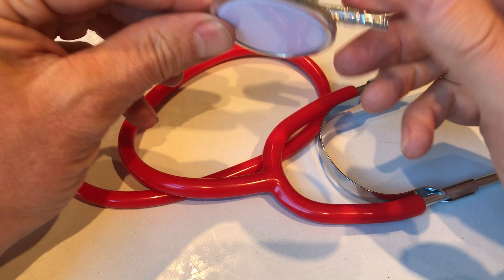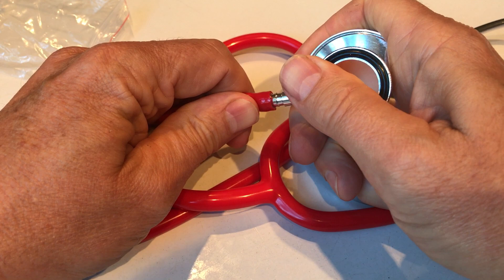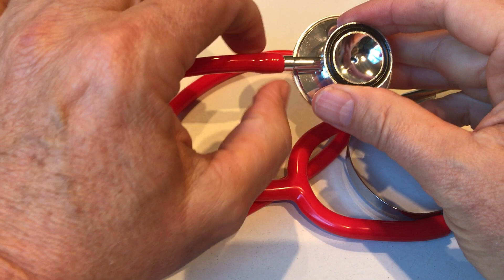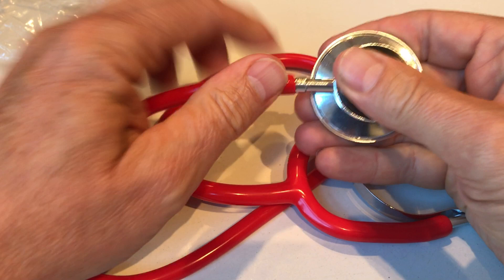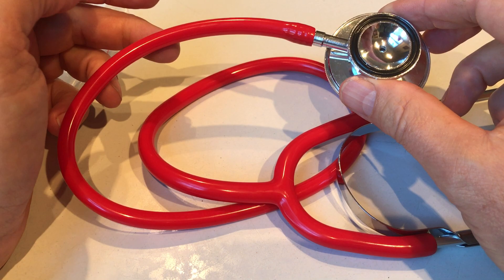To use the diaphragm you rotate it round that way. To fit the chest piece on, it's just a simple push-fit onto the bottom of the tubing. Sometimes these can be very tight. If that's the case, the best thing to do is warm up the tubing by putting it into just-off-boiling water for a couple of seconds to soften it. Then dry it completely — because you won't get a grip on it — and push it right on, in this case right to the end where you've got the bevel. Some designs won't have that bevel; they'll have two little engraved lines on the tube that you push into the rubber tubing. If so, push up to the second line.